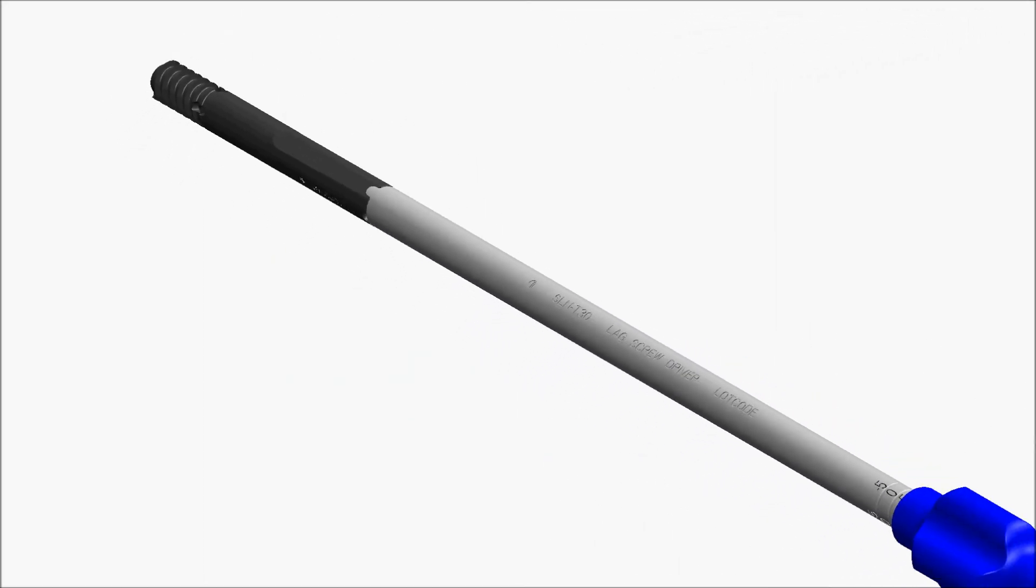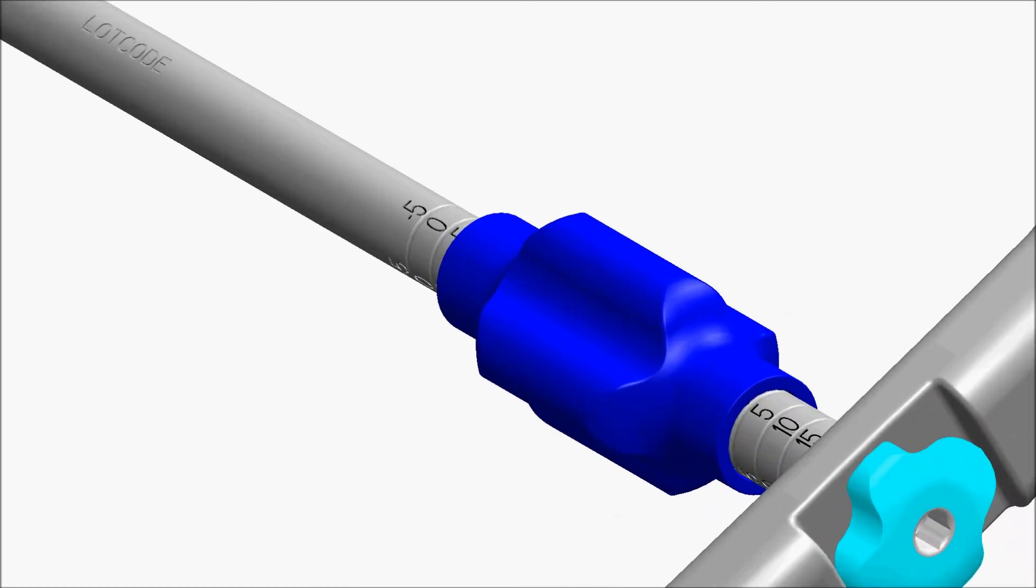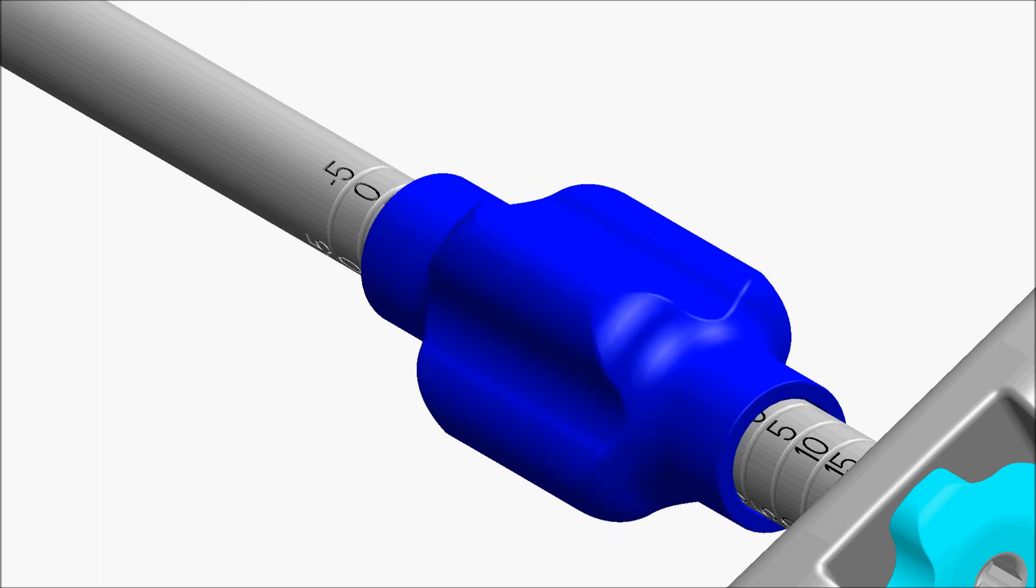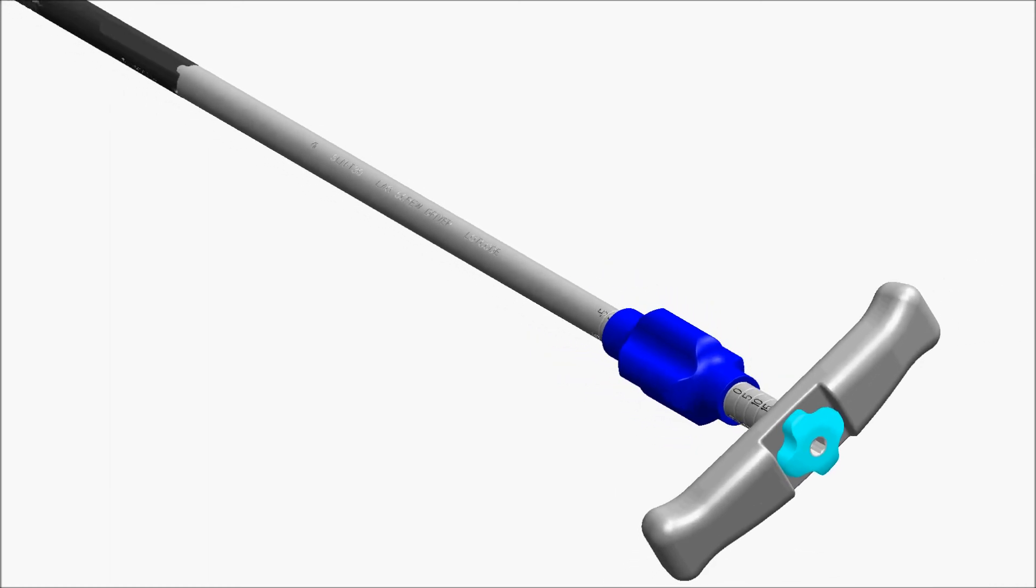Mate the chosen lag screw with the lag driver. Set the compression knob to zero. See the technique guide for situations in which the compression knob would be set to a value other than zero.